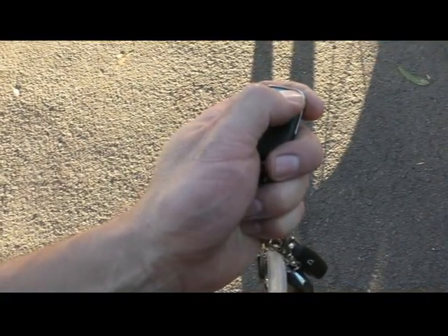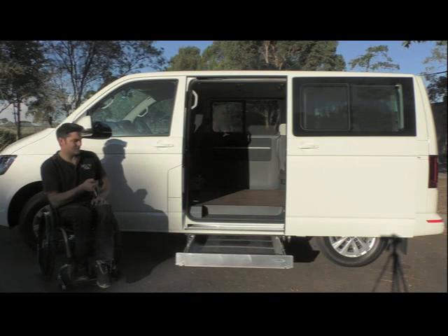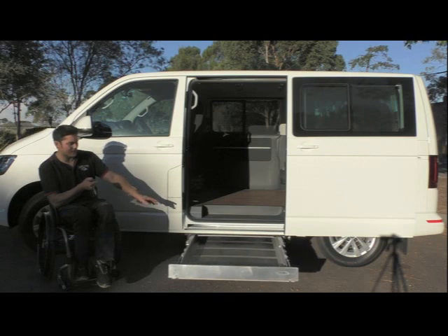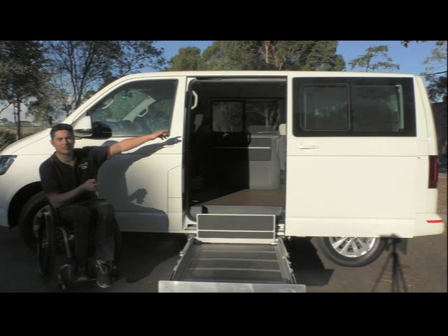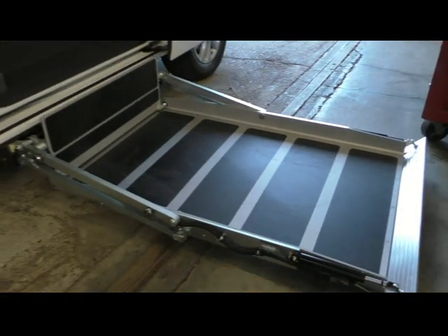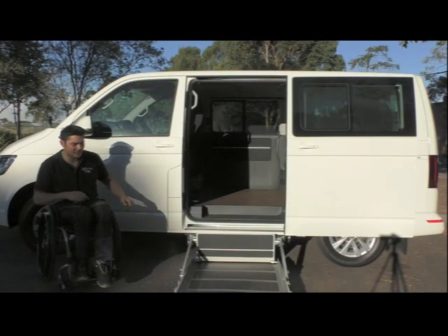It's got a pendant inside the vehicle but it also comes from the remote here. This is all K90 cassette under-floor hoists. These are great because it doesn't impede access in the back of the vehicle or the side. They're really lightweight as well — it's all alloy construction and it's all concealed underneath the vehicle. So there you go, that's all out.